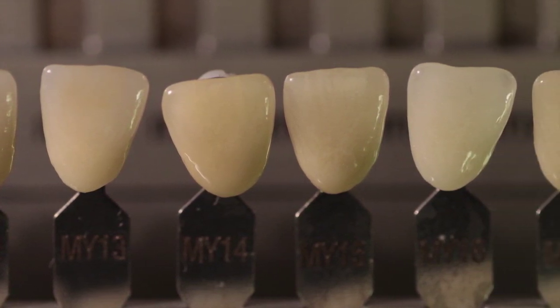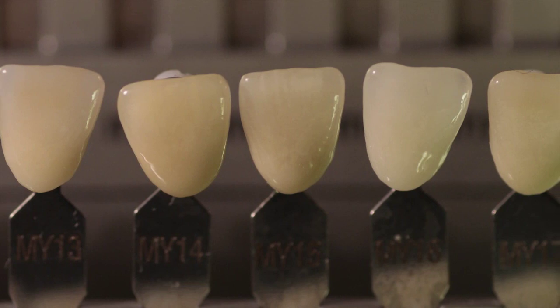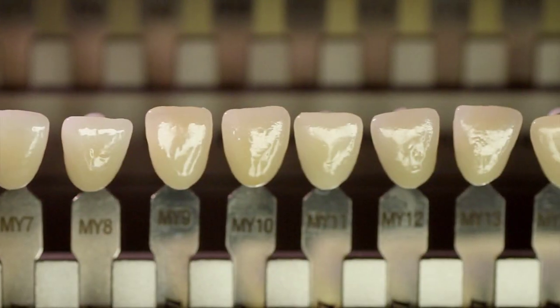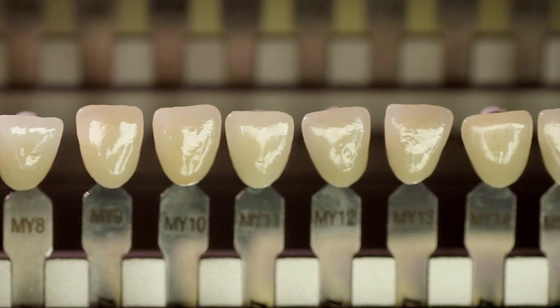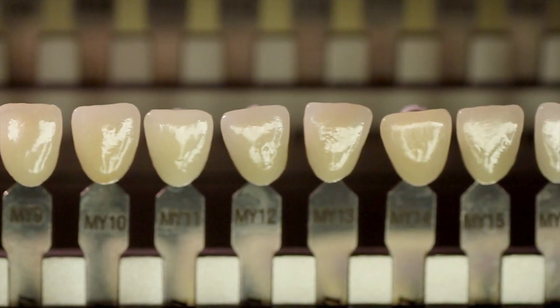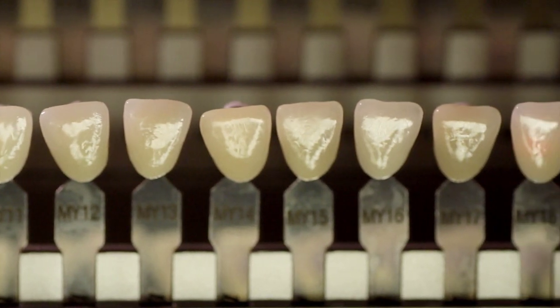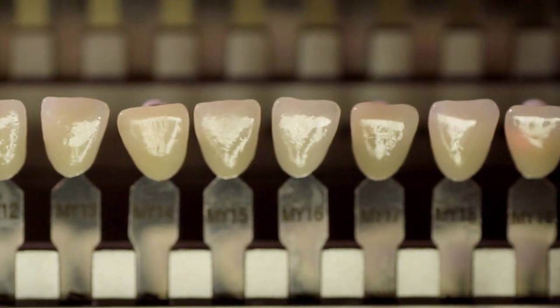High enamel color is imitated in the 3.0 series, with less enamel and greater translucency in the 4.0 series. The shade tab variations are based on natural dentition, as seen in patients' mouths. Because of in-depth research, we are able to offer a true repetition of lifelike enamel colors.